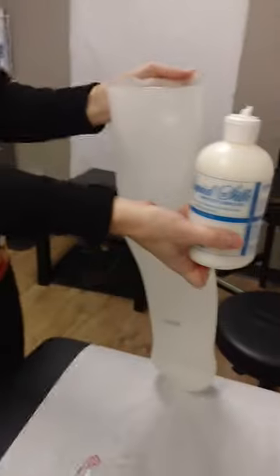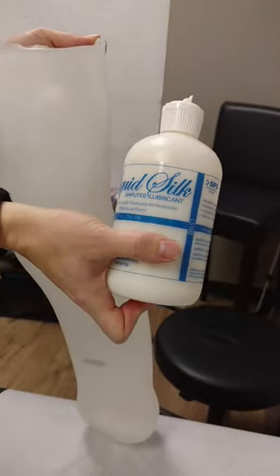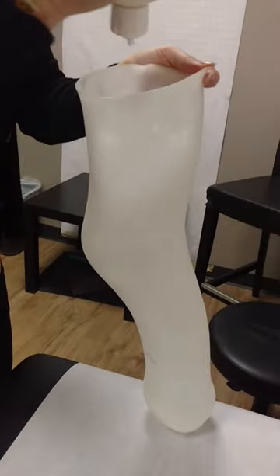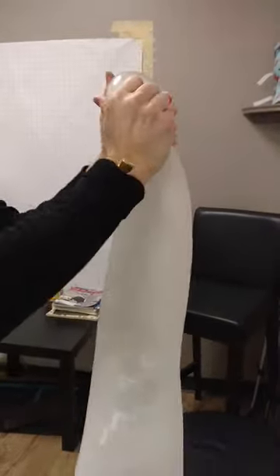You got your liquid silk amputee lubricant. You put in about a quarter, a nickel amount, but you squirt it all around — I'll show you the inside. I just gave it a... and this is what we cast it for last week, the custom liner. So you try to kind of dribble it on the sides and then rub it around so it kind of gets all over.